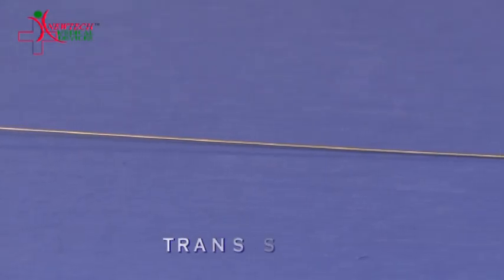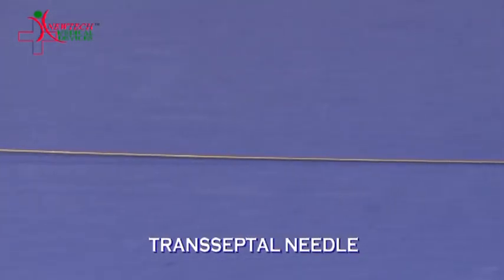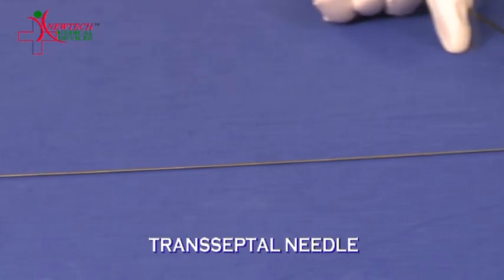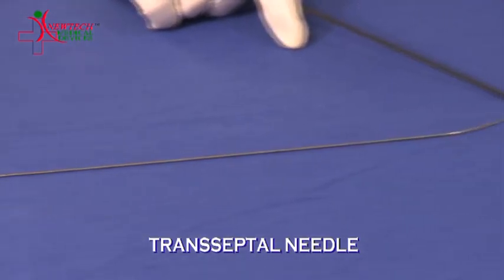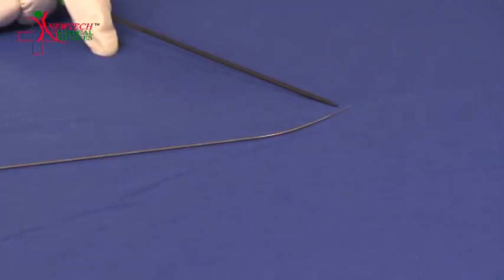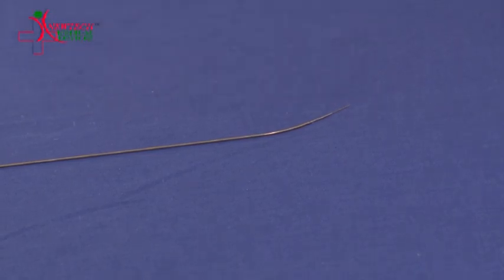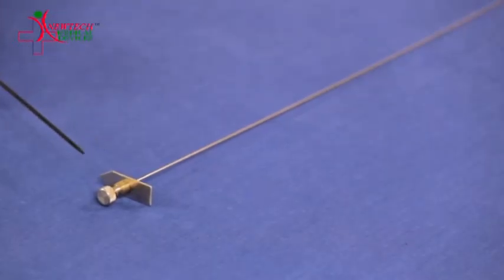This is a transeptal needle. During the procedure of mitral valvoplasty, the fossa ovalis is pricked using a transeptal needle. Our transeptal needles have a nice ergonomic handle.